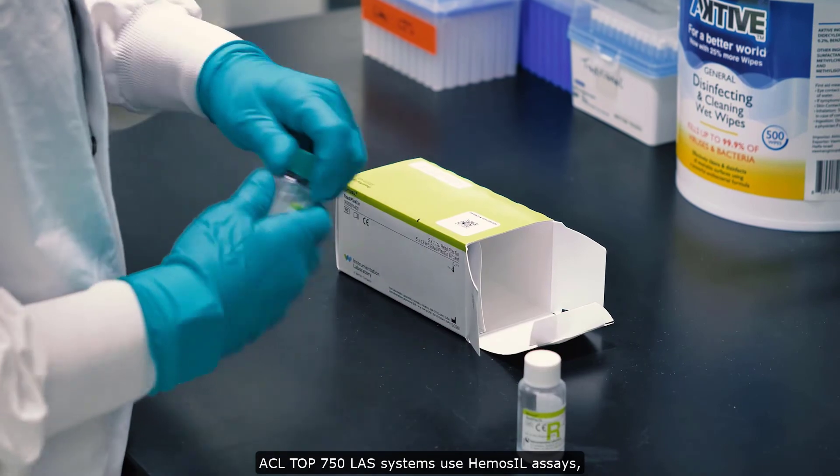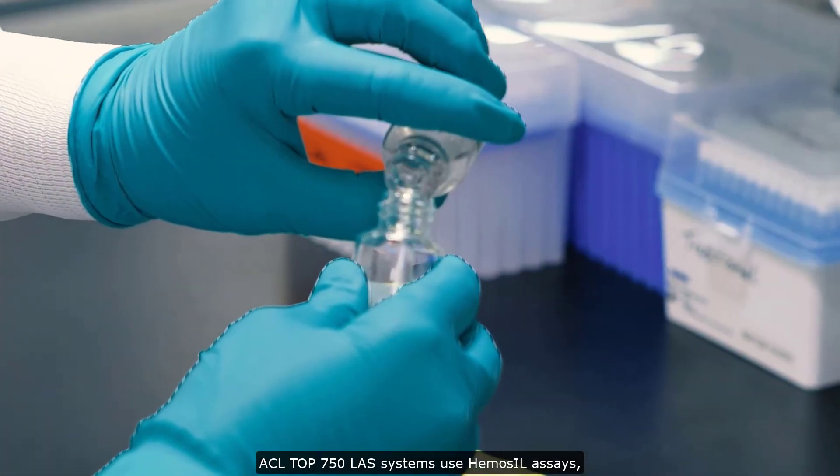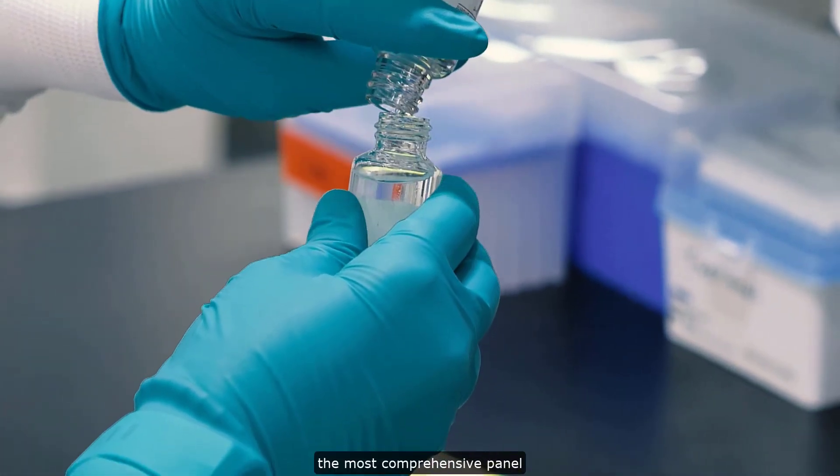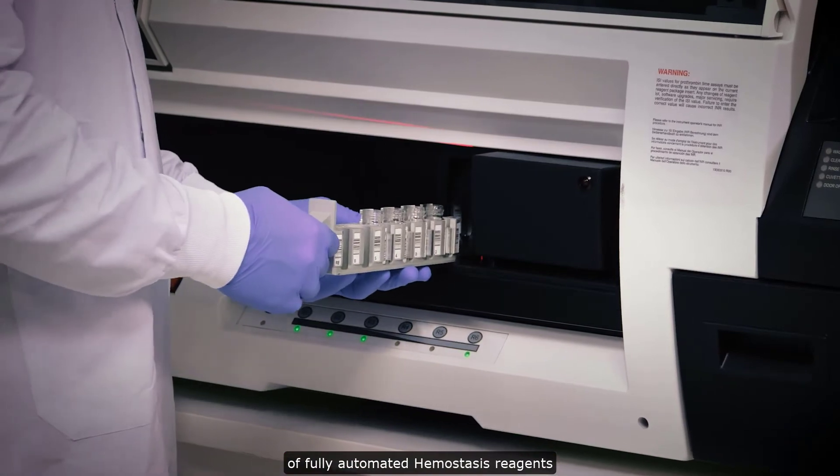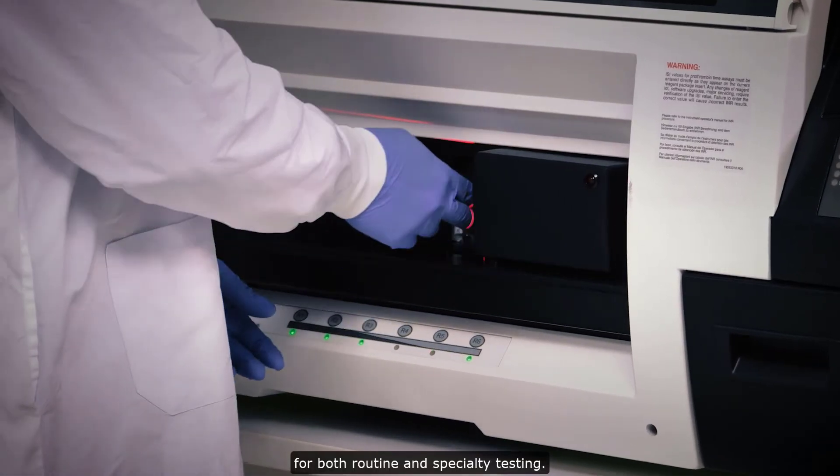ACL Top 750 LAS systems use Hemosil assays, the most comprehensive panel of fully automated hemostasis reagents for both routine and specialty testing.